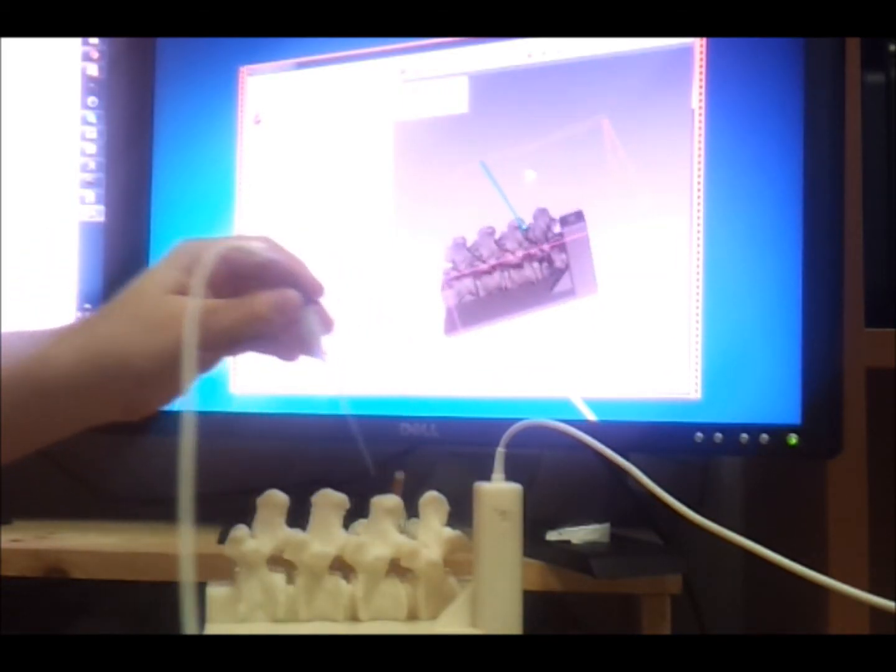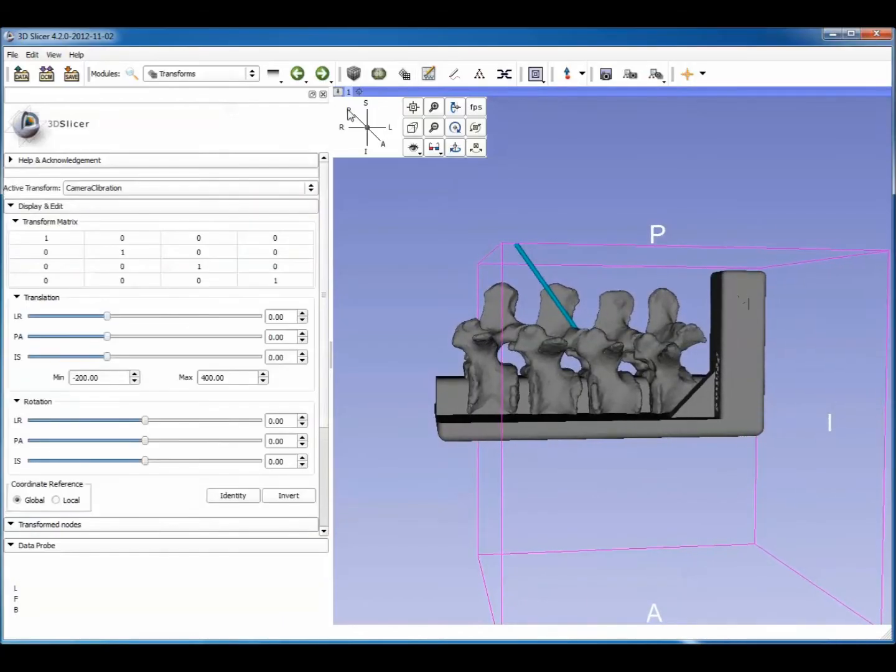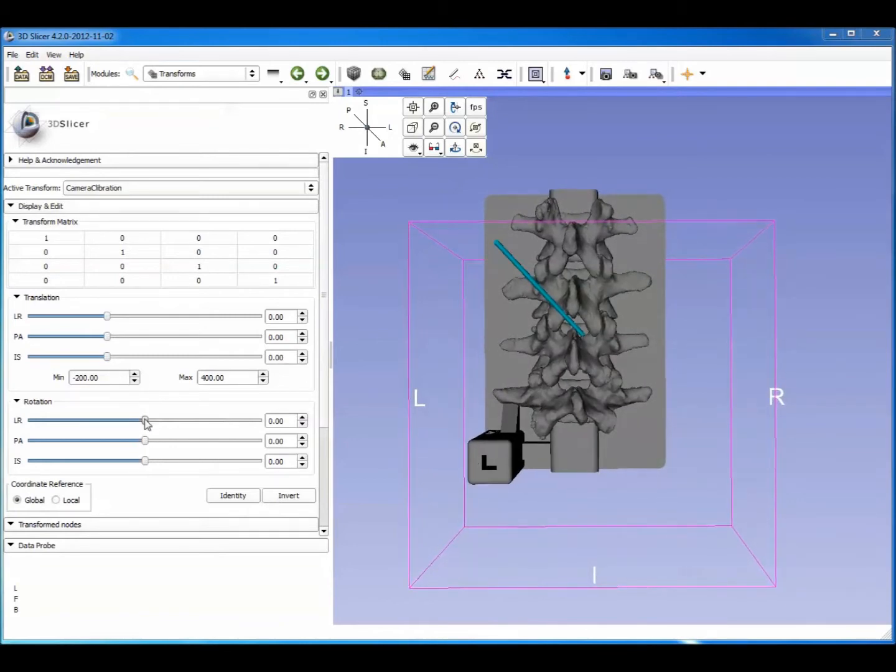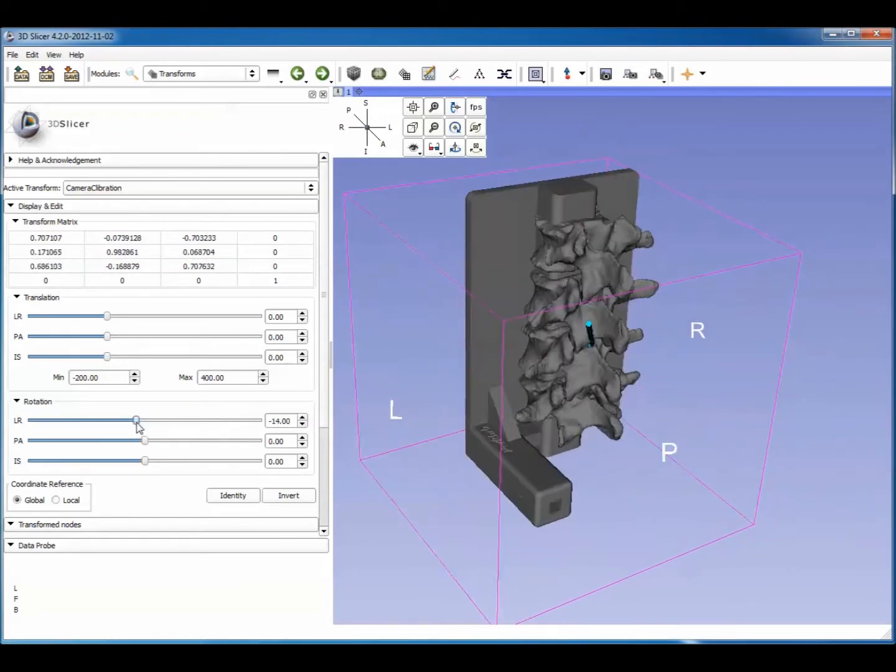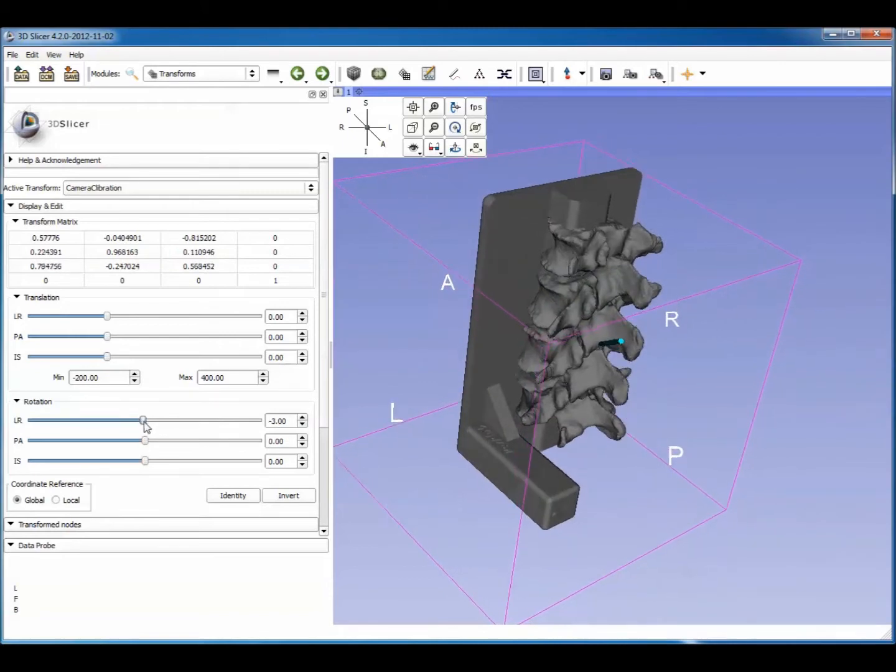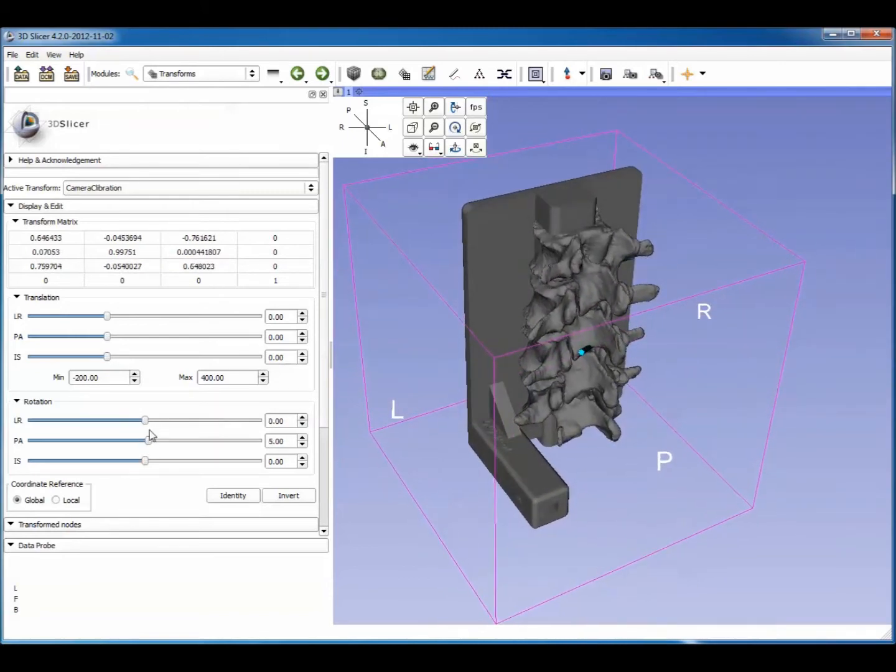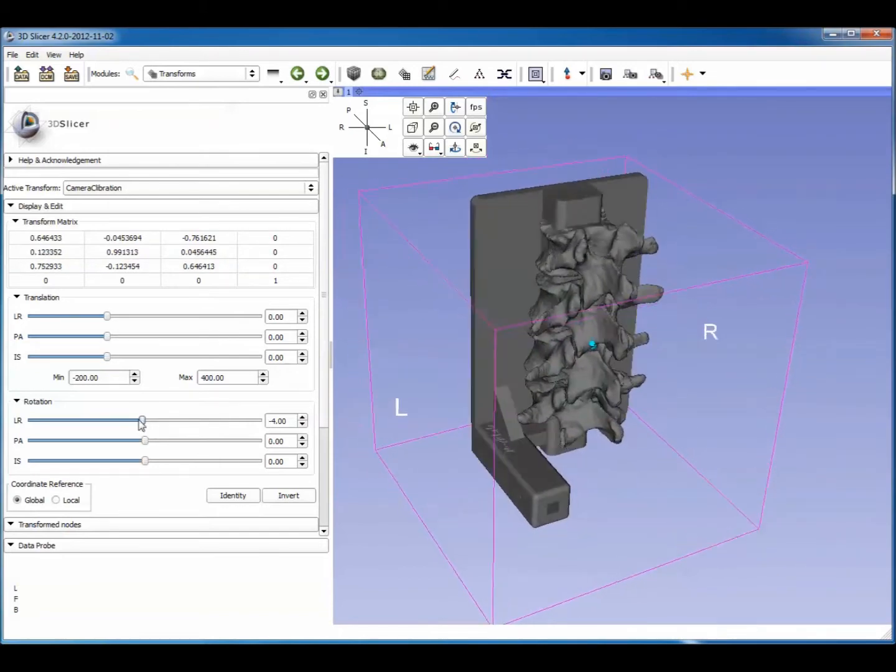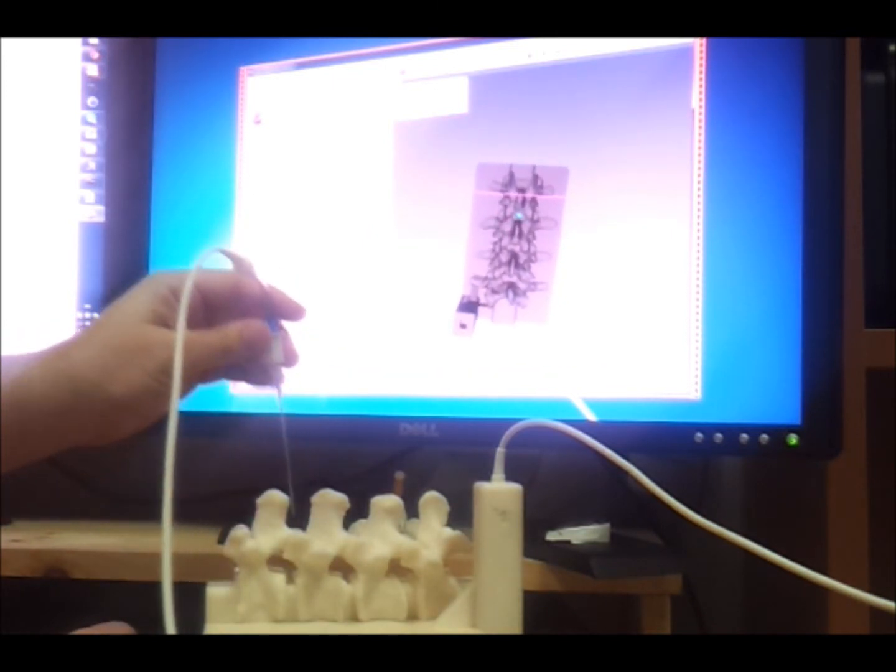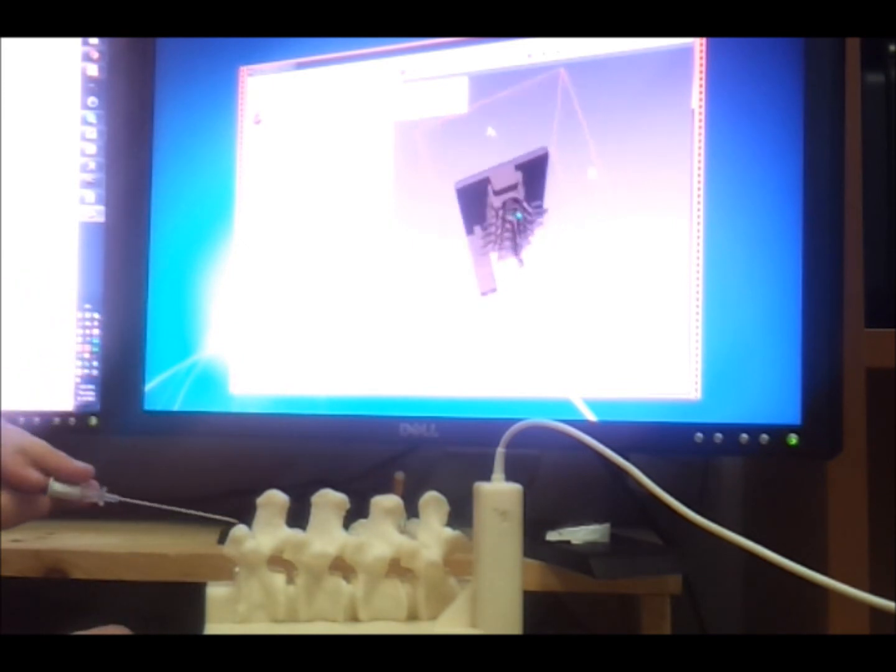I'm moving the 3D viewer camera using the needle, and now I'm changing the camera calibration matrix to align the point of view. The direction the virtual camera looks at is roughly the same as where the needle points. You can see the direction of the camera is already correct.